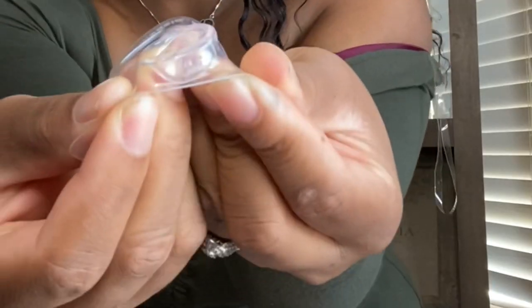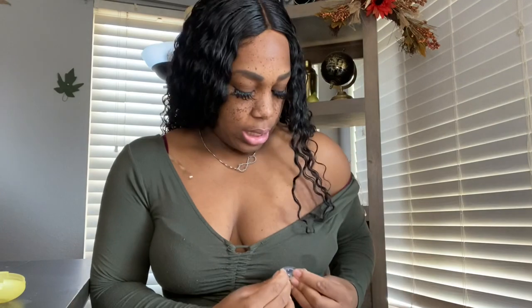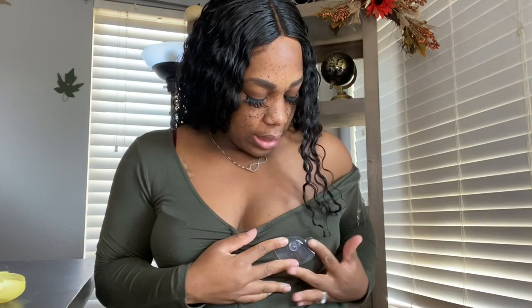Ladies, I don't know if I'm the only one, but when we started breastfeeding our nipples got bigger — like my nipples got so much bigger, they look like gumdrops. They're that big, and that's why I don't feel comfortable showing my boobs to you guys. So you want to fold it over like so, then put your nipple inside and cuff it in like that.